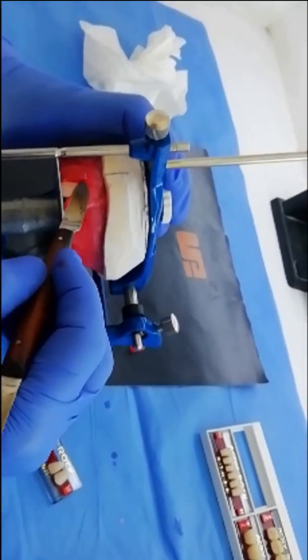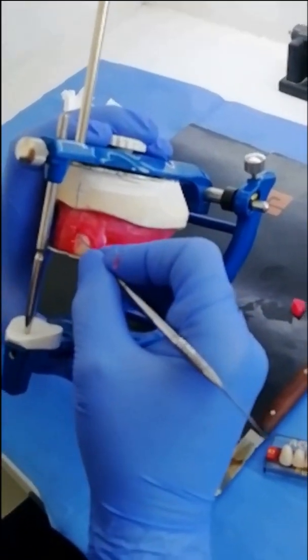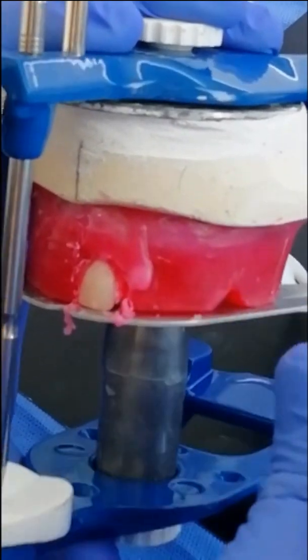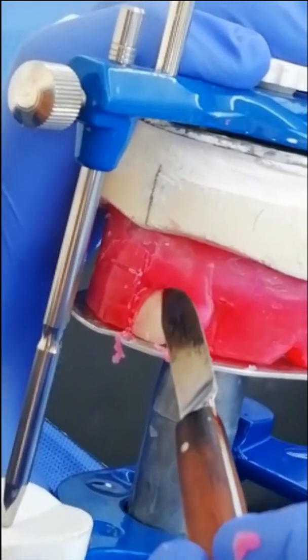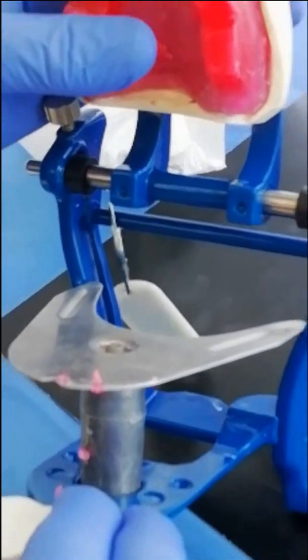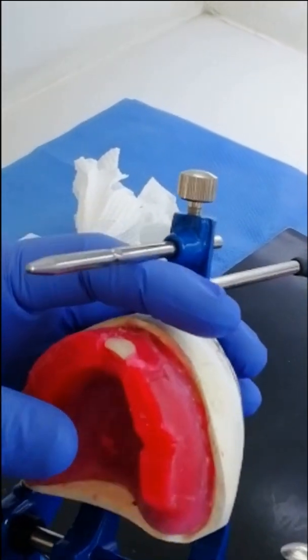We observe the tooth in three views. In the labial view, the long axis will be slightly to the distal, and this is automatically achieved once the incisal edge is completely touching the occlusal table. We give time for the wax to cool down and become hard. In the occlusal or incisal view, you can see that the tooth is not changing the contour of the wax — it's completely within the wax.